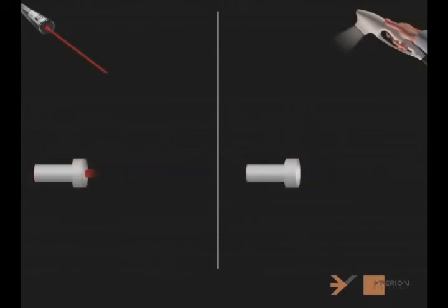And lastly, the laser beam is focused, meaning it is concentrated on a small surface, whereas pulsed light can treat wider surfaces simultaneously.